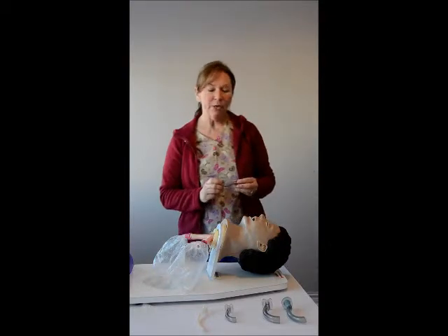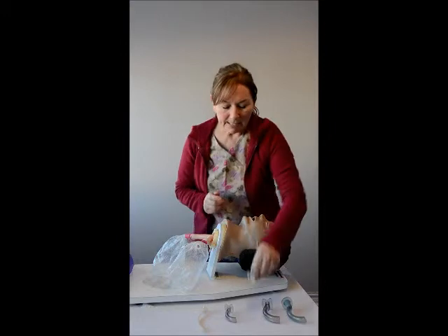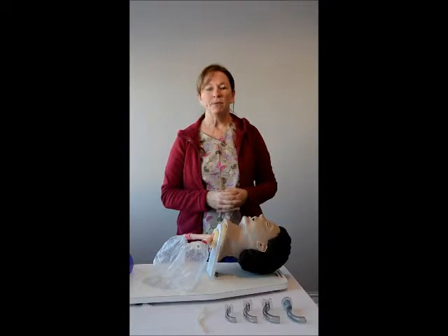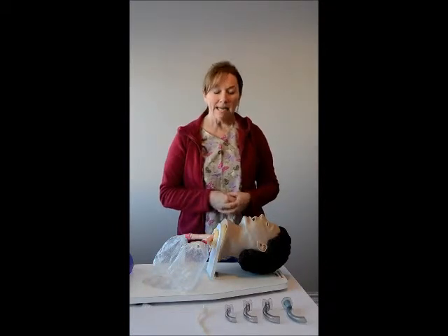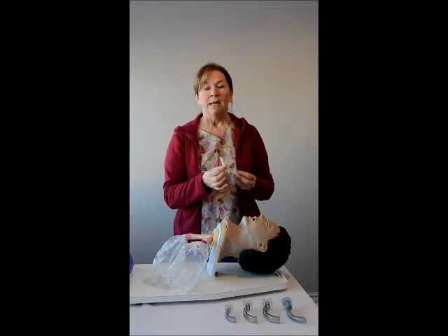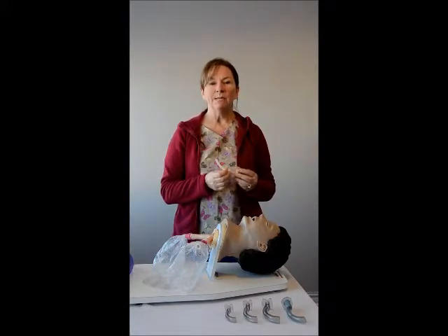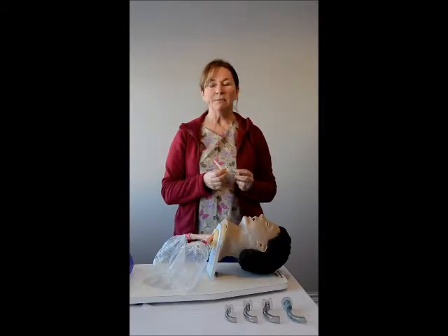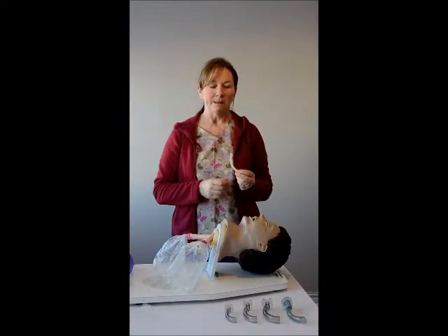The only contraindication to the oral airway is a patient who has an active gag reflex. In many situations you may have a patient presenting with a compromised airway where you need to maintain a patent airway but the patient is still conscious. In that case we may opt to insert a nasopharyngeal tube. The only contraindication to insertion of the nasopharyngeal tube is a patient who has a basal skull fracture or a suspected basal skull fracture. Anyone presenting with fractures in the face — we can make that assumption — this would not go in that patient.